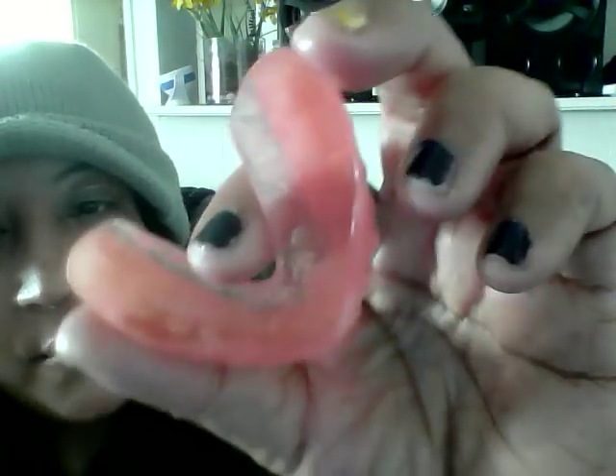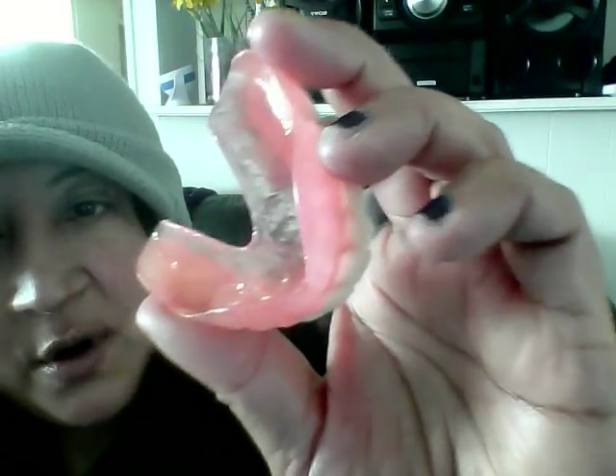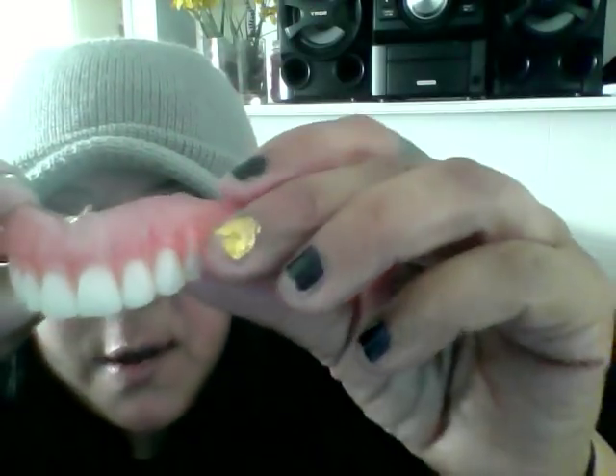Watch the change in the gums with the ultra thin — there's nothing in there, no relying on pink at all. Very transparent; for someone tan like me, you get that natural look, not just a natural pink look.